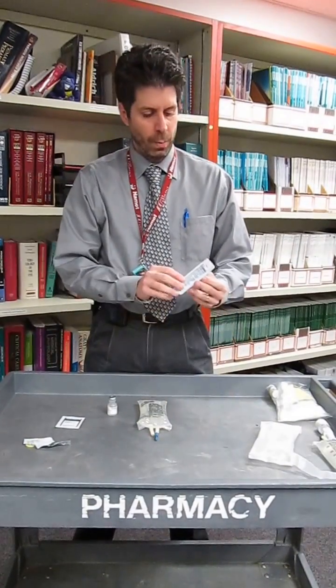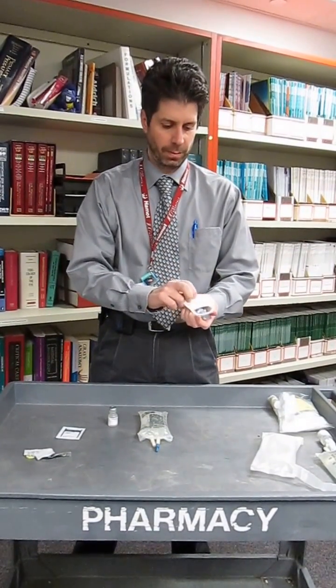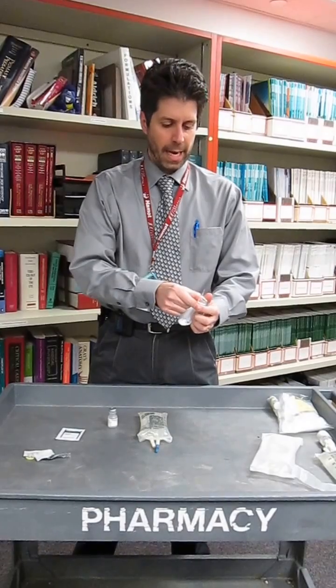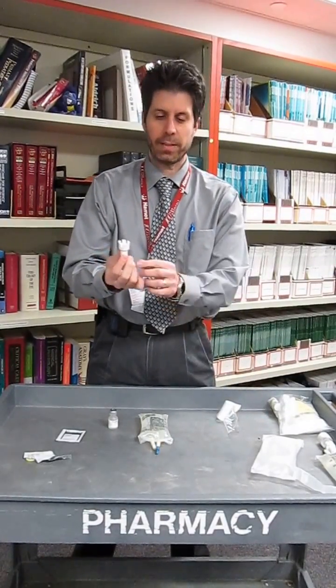At this time then we open up our product called VialMate. This is a sterile product so once we start opening this up we want to be careful what we touch. We pull it out of the packaging and we do not touch any part that's exposed.